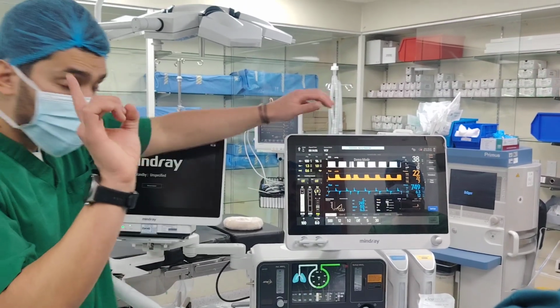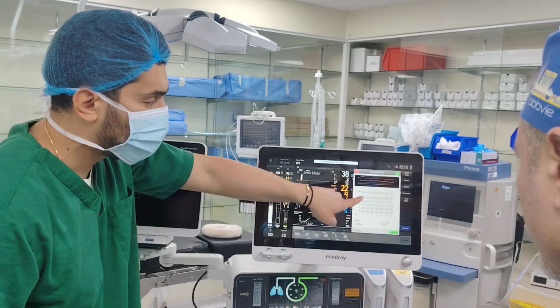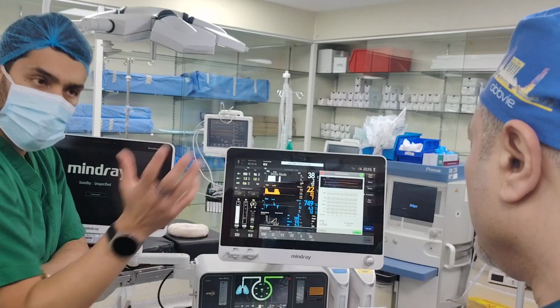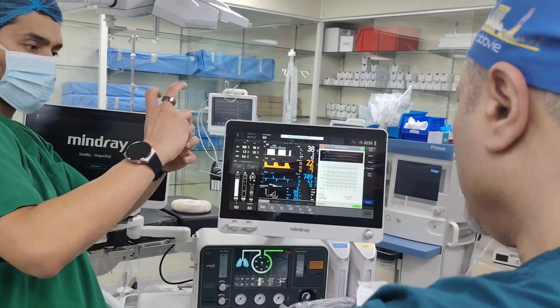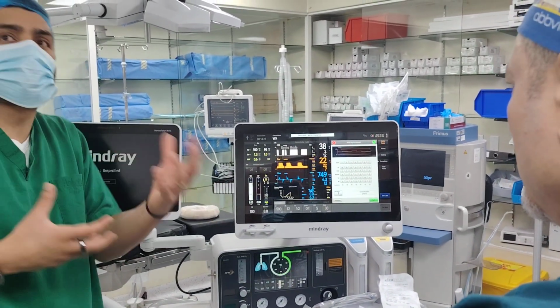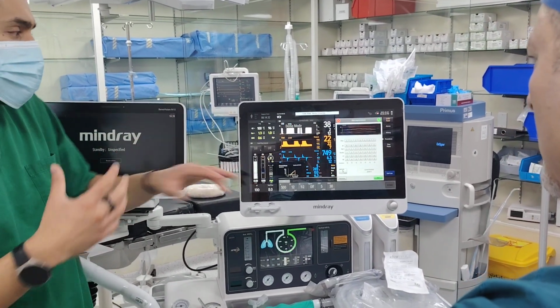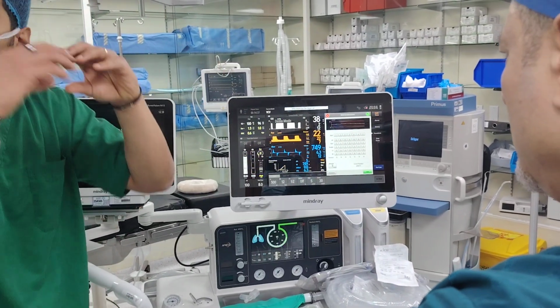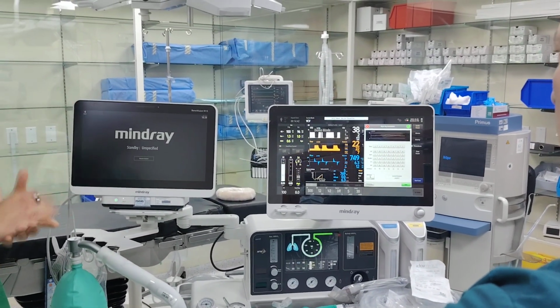But one important thing is why I wouldn't say you need to change, because you fixed the volume here. That's why I insist on putting 15, 15, 15 or 12, 12, 12 or whatever it is. If today you give different pressure support or delta P, you have different volumes. When you have different volumes, then your assessment is not very accurate. When you want to do an assessment, the start of the PEEP and the end of the PEEP must be the same. Volume must be all the same to really know if I improved or not.